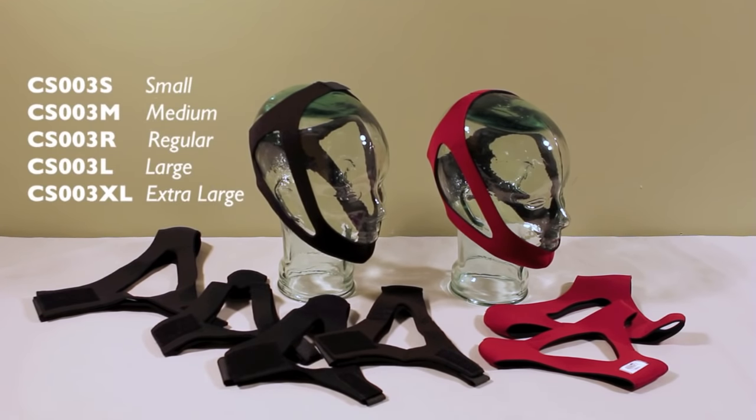whereas the sunset adjustable chin strap comes in five sizes: small, medium, regular, large and extra large.